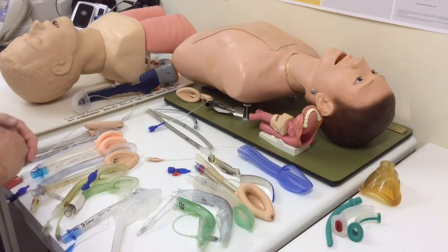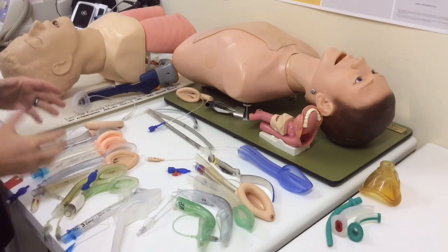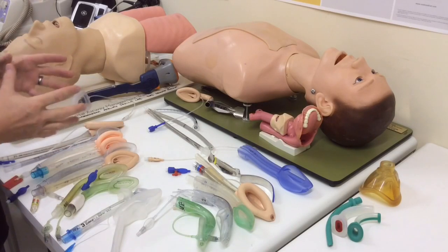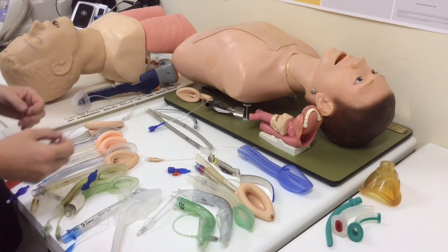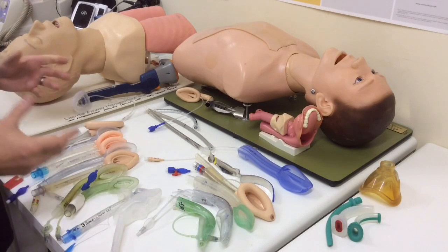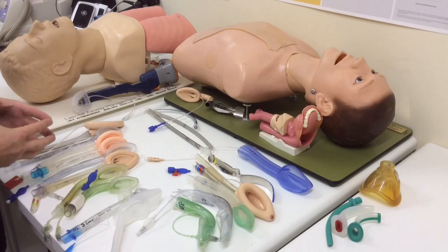So in this video we're going to talk about what are supraglottic airways and some examples of the different devices and the different classes. In subsequent videos we're going to go into things like the precautions, the placement, the use, the troubleshooting, intubating through supraglottics, and some specifics on specific types.